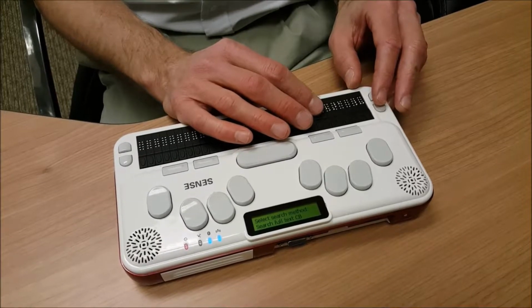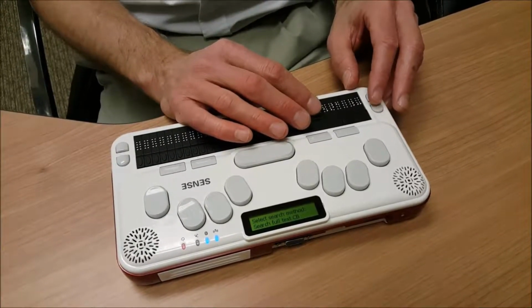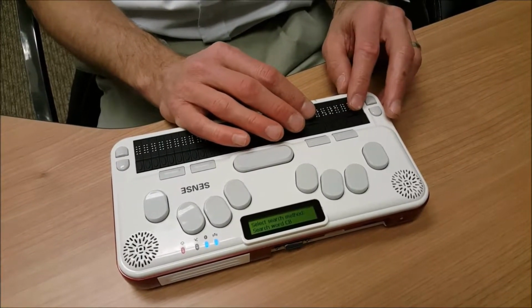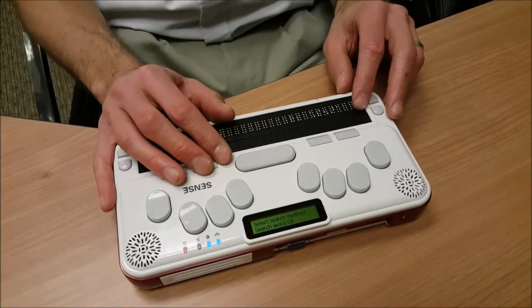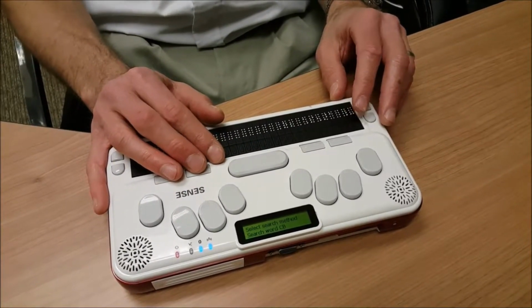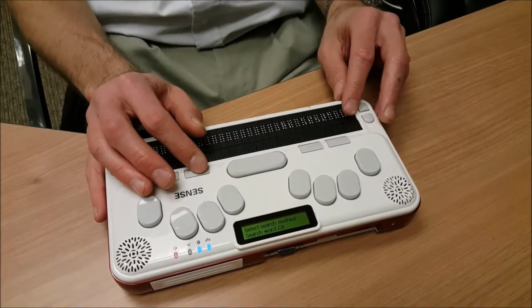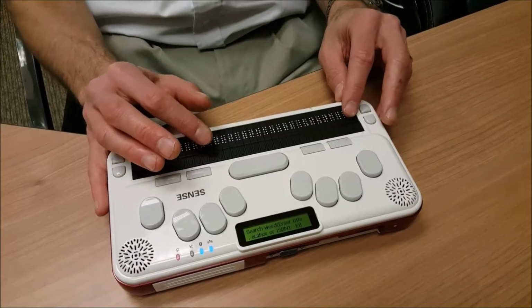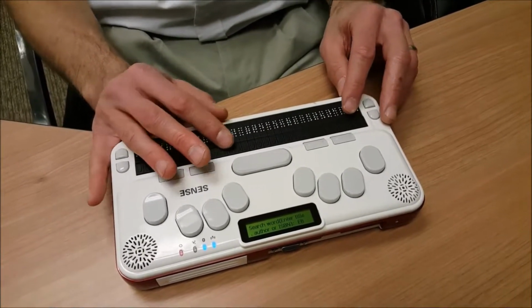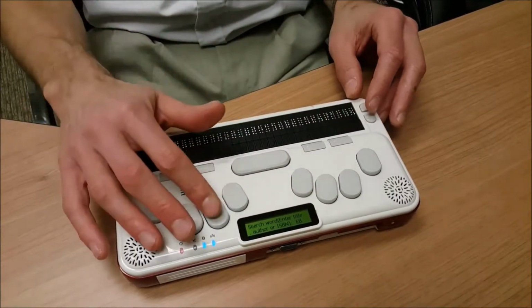I'm going to scroll back around to search by word. Search word. Combo box. And now that I have selected how I want to search with Bookshare, I can press my Tab key or Function key 3. Search word. Enter title, author or ISBN. Edit box. And as the Braille Sense U2 has announced, I can search by title, author, or ISBN.